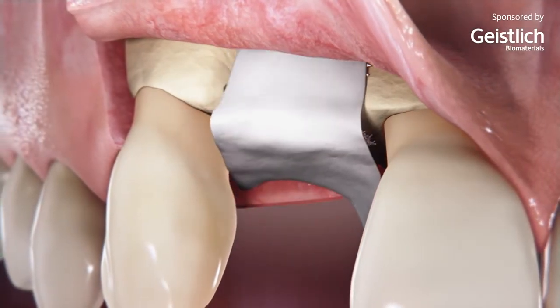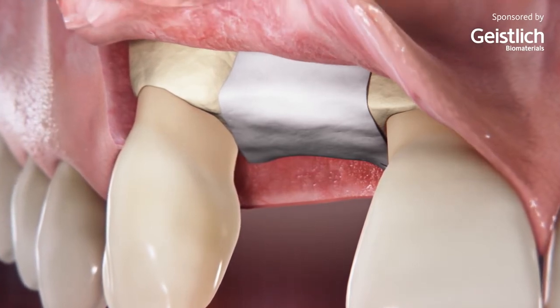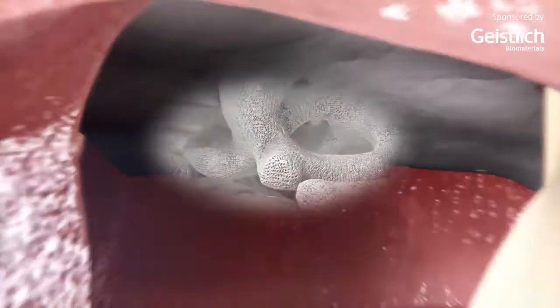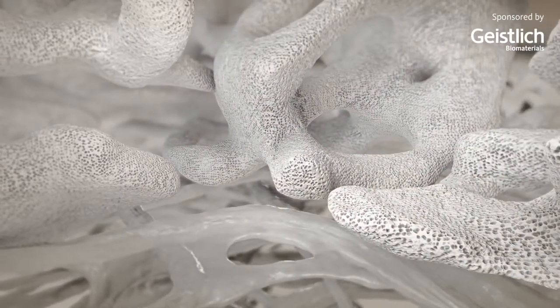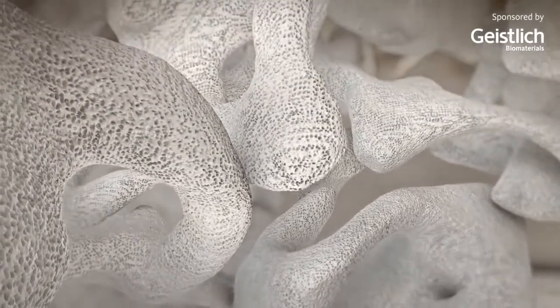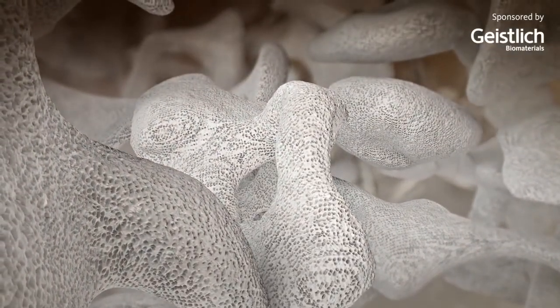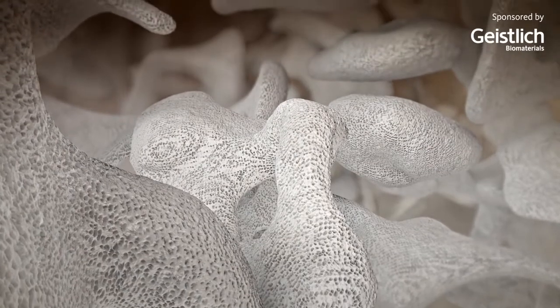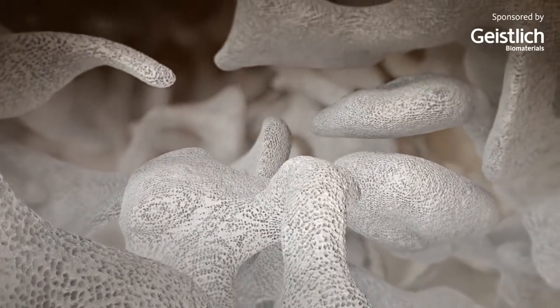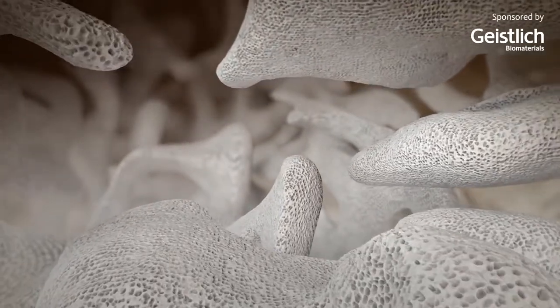An applied collagen membrane serves both mechanical and biological purposes. Mechanically, the membrane improves the stability of the applied bone chips and deproteinized bovine bone mineral particles in the augmented area. Biologically, the membrane provides a secluded space and prevents the ingrowth of soft tissue from the overlying mucosa.